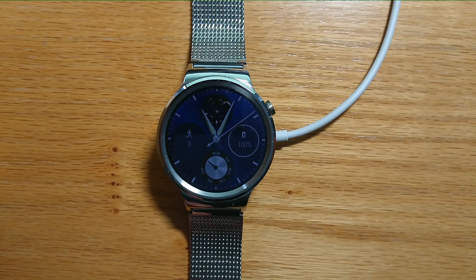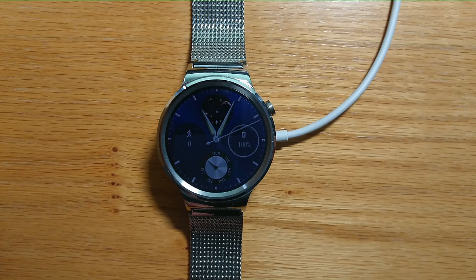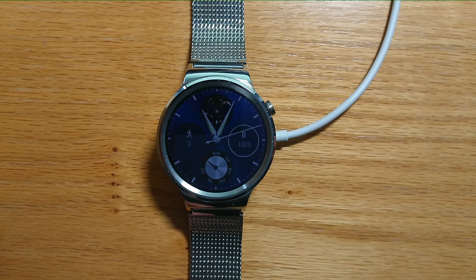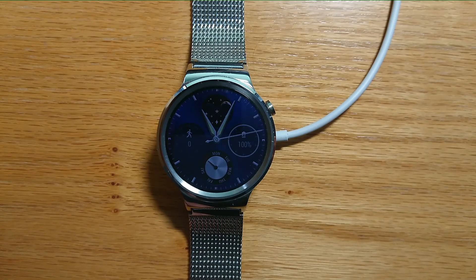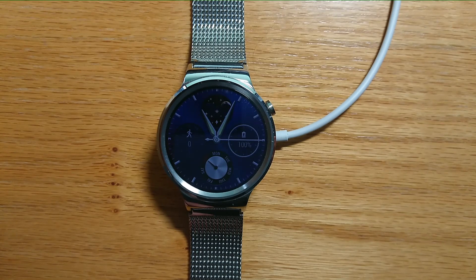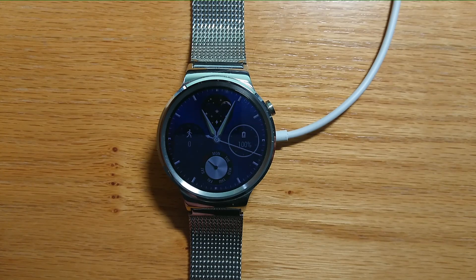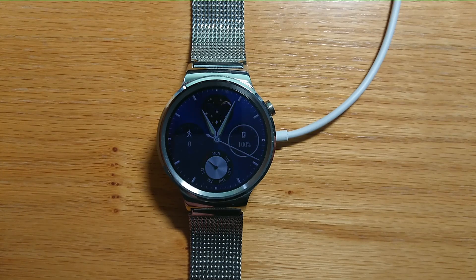Hi, I'm Malcolm, the developer of WearInstaller. Today I'm going to show you how to install the Dexcom G6 watch face onto a watch running an older version of Wear OS, like my Huawei watch here.